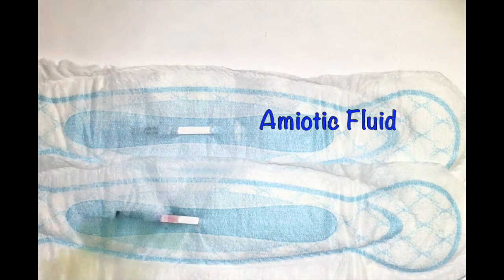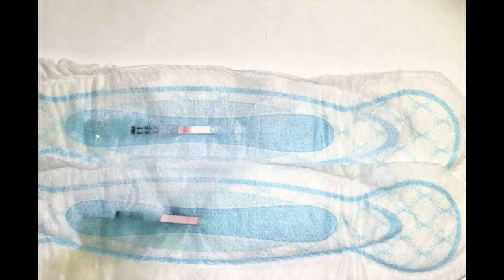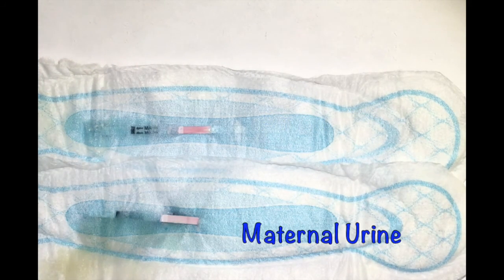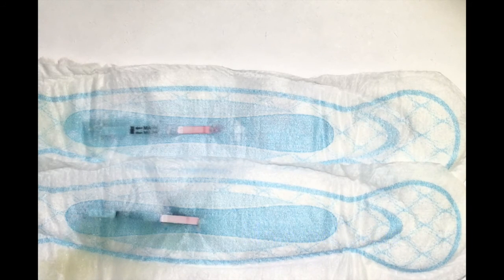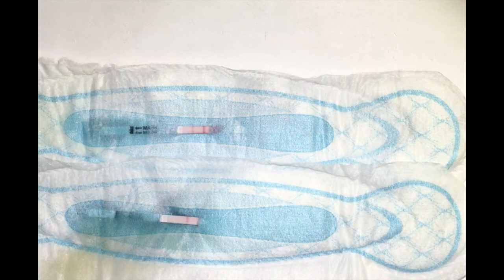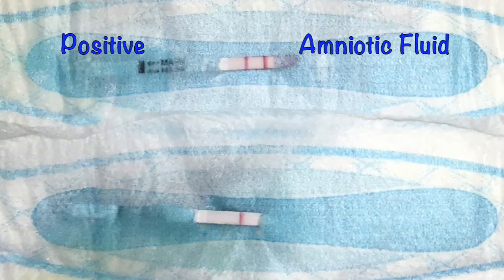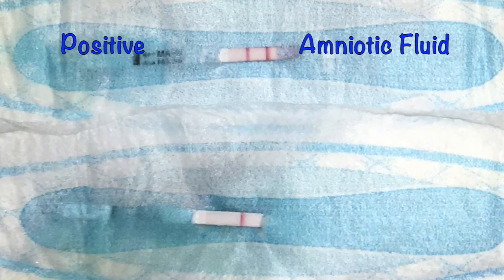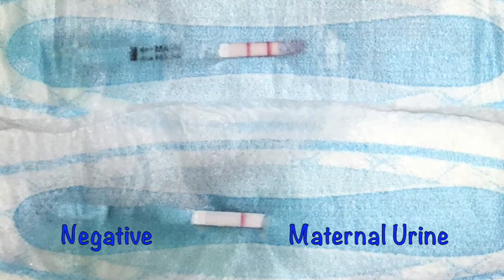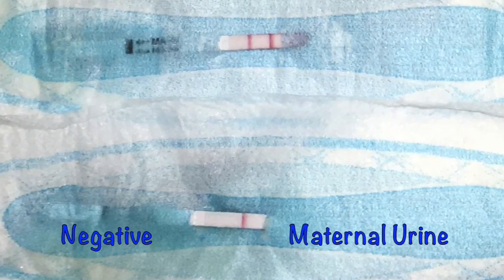In the following clip, amniotic fluid is instilled into the pad at the top and maternal urine is instilled into the pad at the bottom. A positive result is shown following the instillation of amniotic fluid, and a negative result is shown following the instillation of maternal urine.